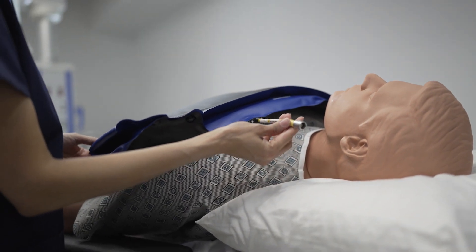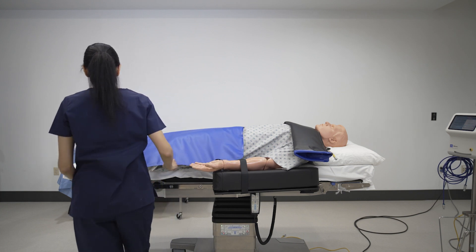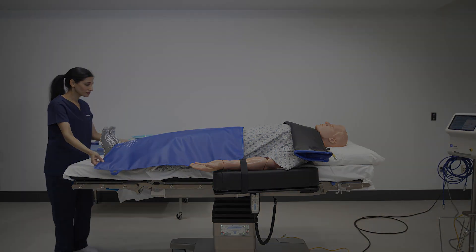The soft, non-porous urethane outer shell is sealed around the edges and embedded with an antimicrobial agent to reduce potential infection risk.